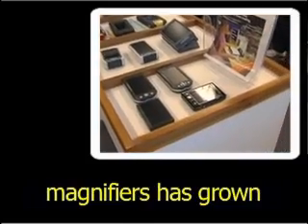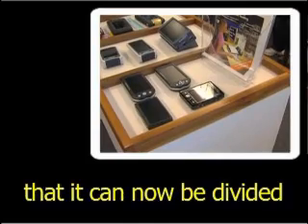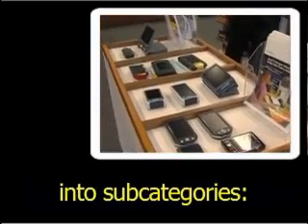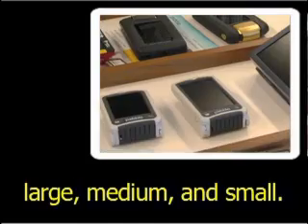This category of video magnifiers has grown so rapidly that it can now be divided into subcategories: large, medium, and small.